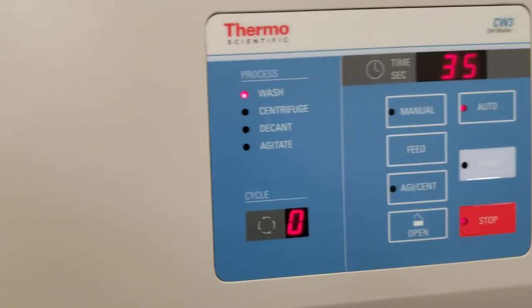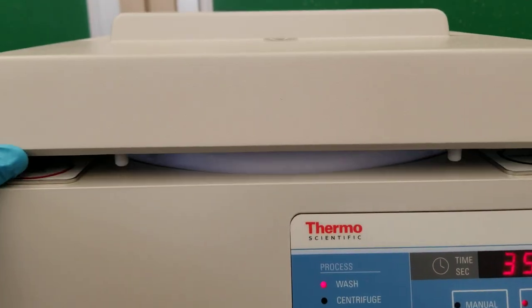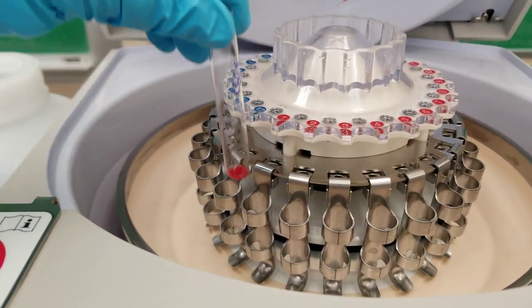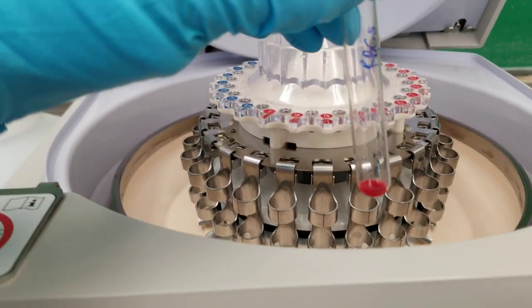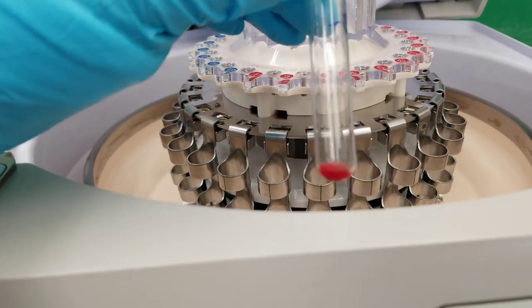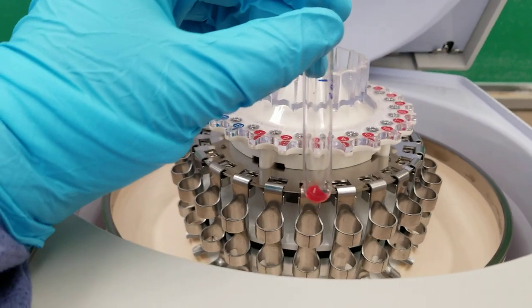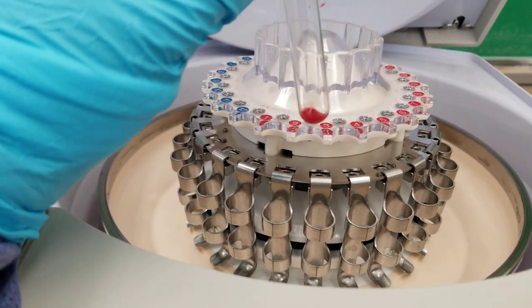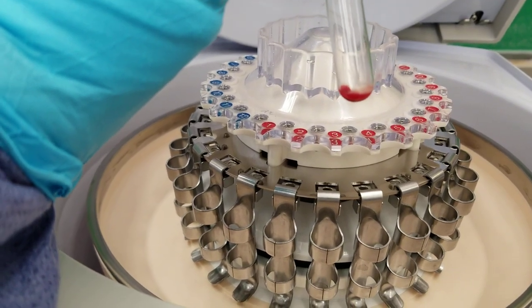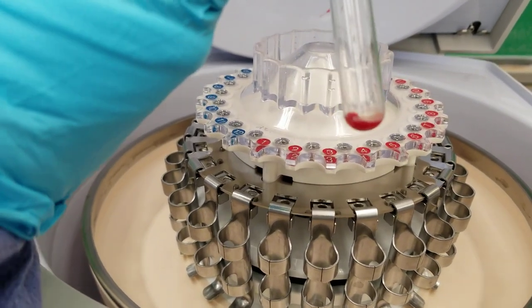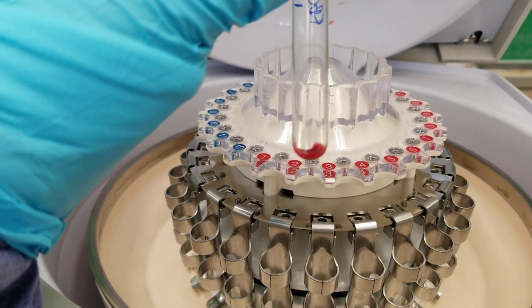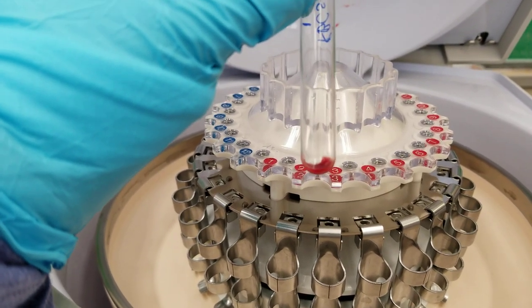So you get that nice little beep. It pops it for you. You open it up and let's see what they look like. Okay. So like I said, I did put a good amount of cells in there just so that you could see it really well in the video. I'm not running anything right now in blood bank, but you get this nice just cells at the bottom. You don't get that extra saline that you might not be able to decant all the way.